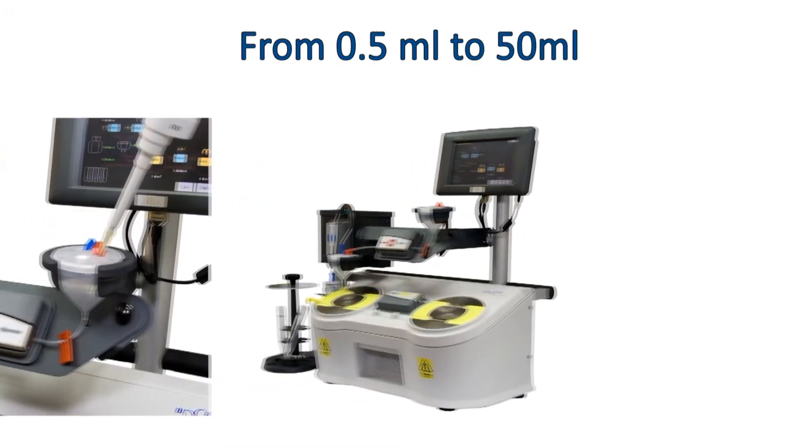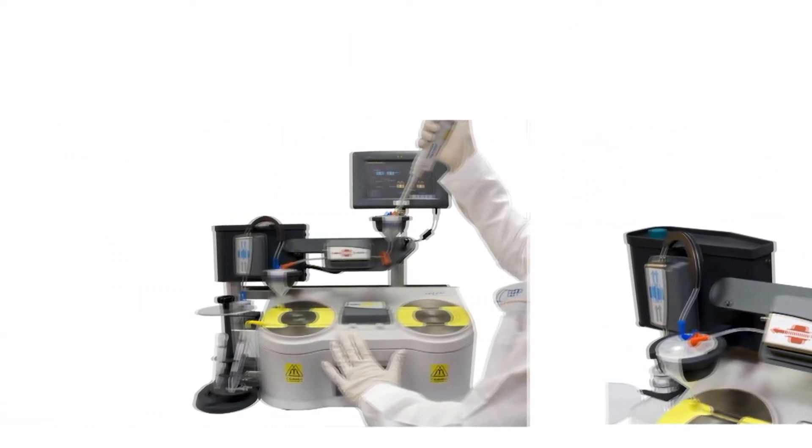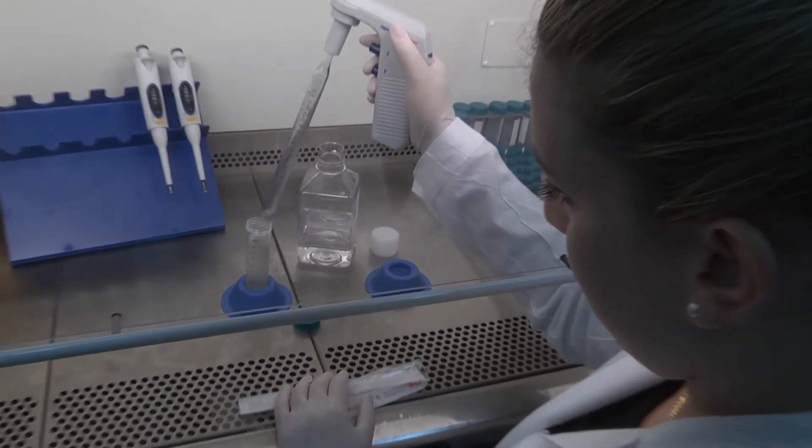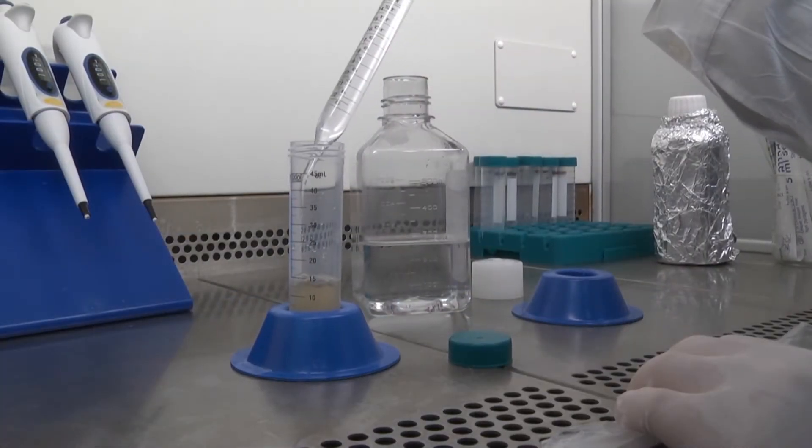Specimens from half a milliliter to 50 milliliters and up to one billion tagged cells can be processed in a single batch. Users can choose from various off-the-shelf beads and reagents. Specimen preparation is as per bead manufacturer instructions.